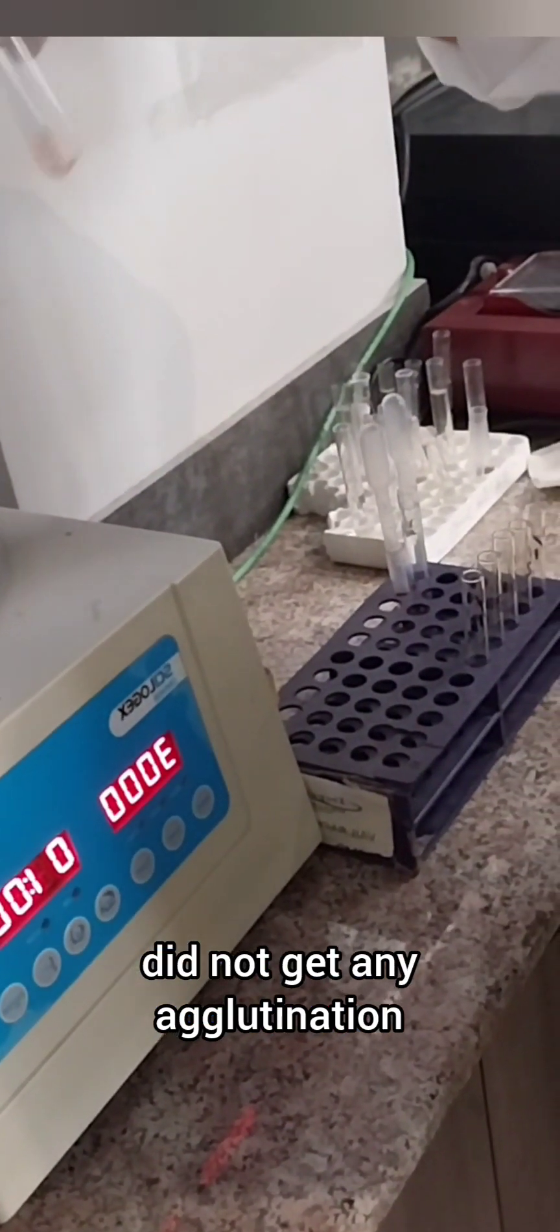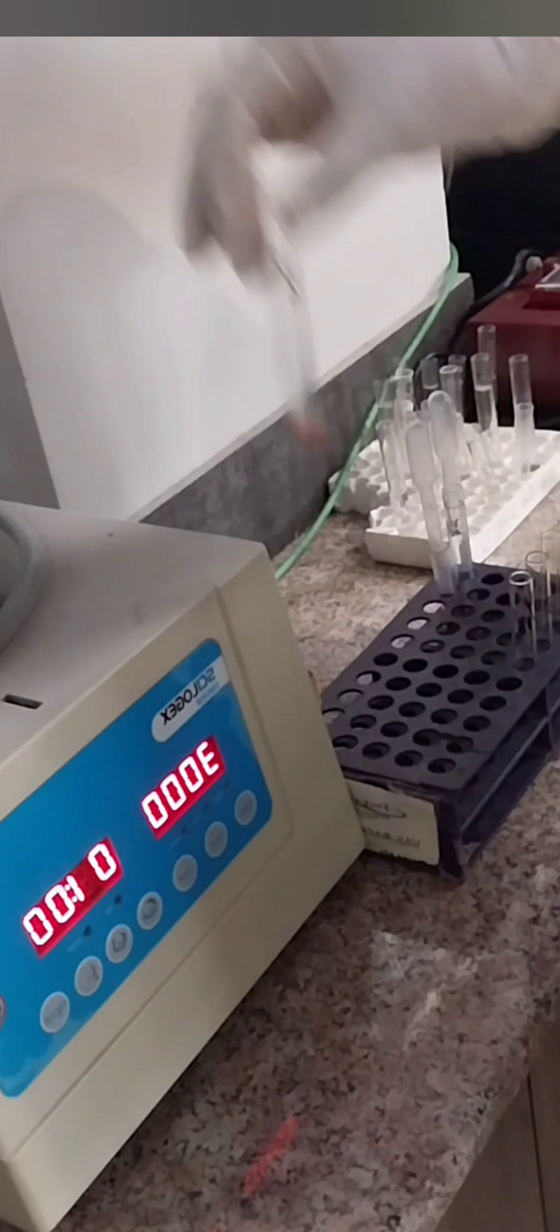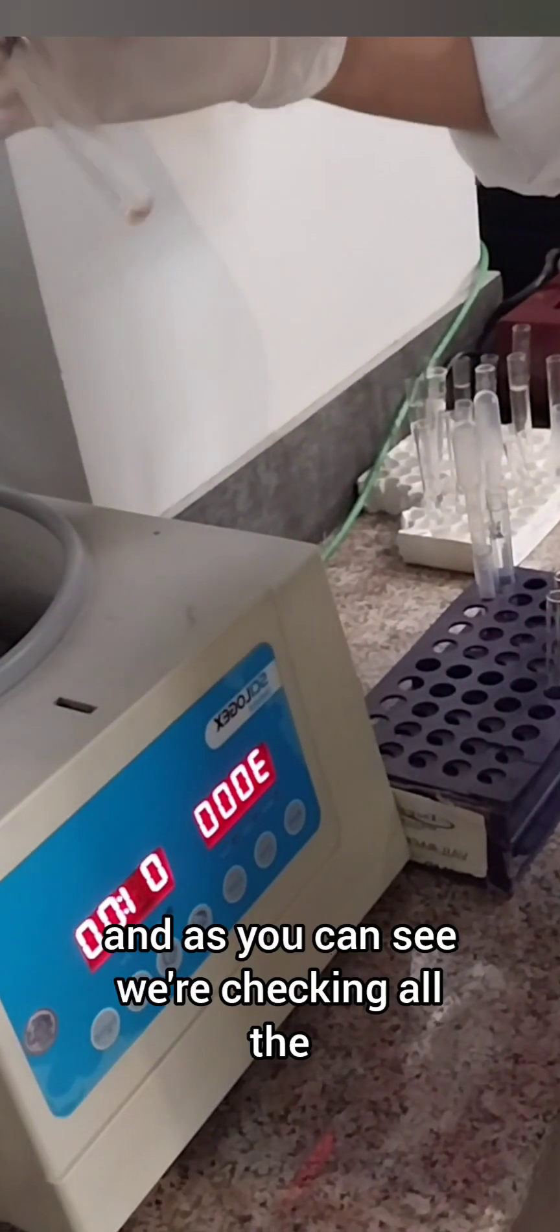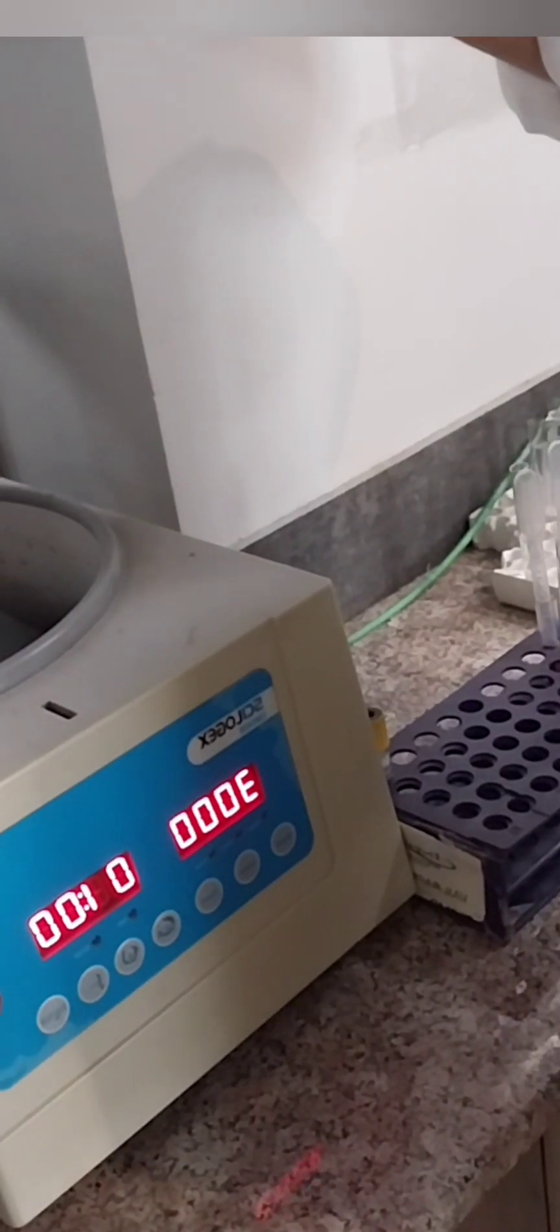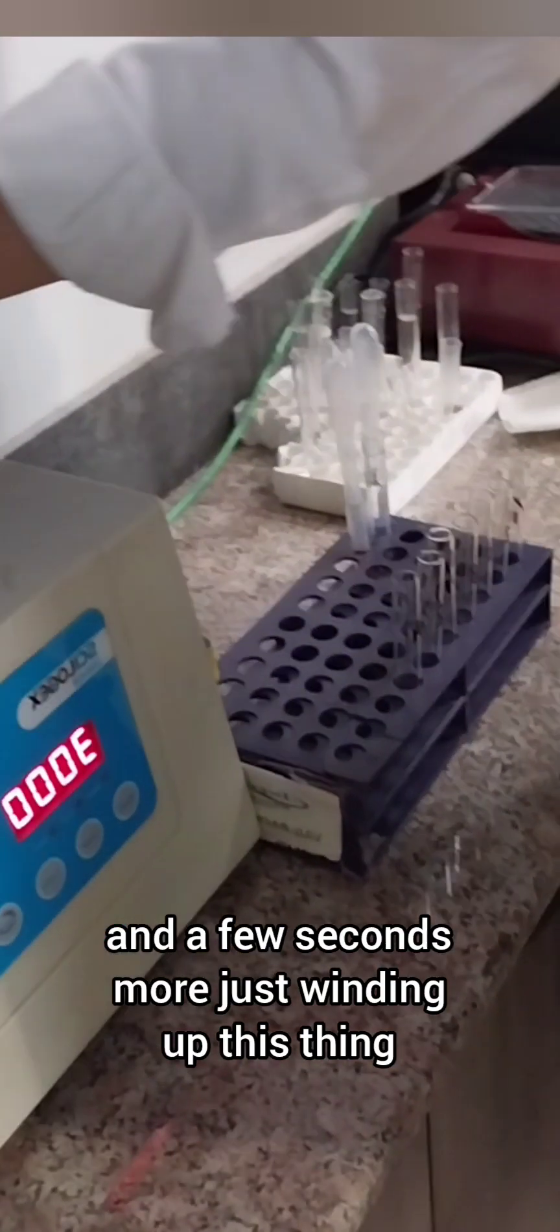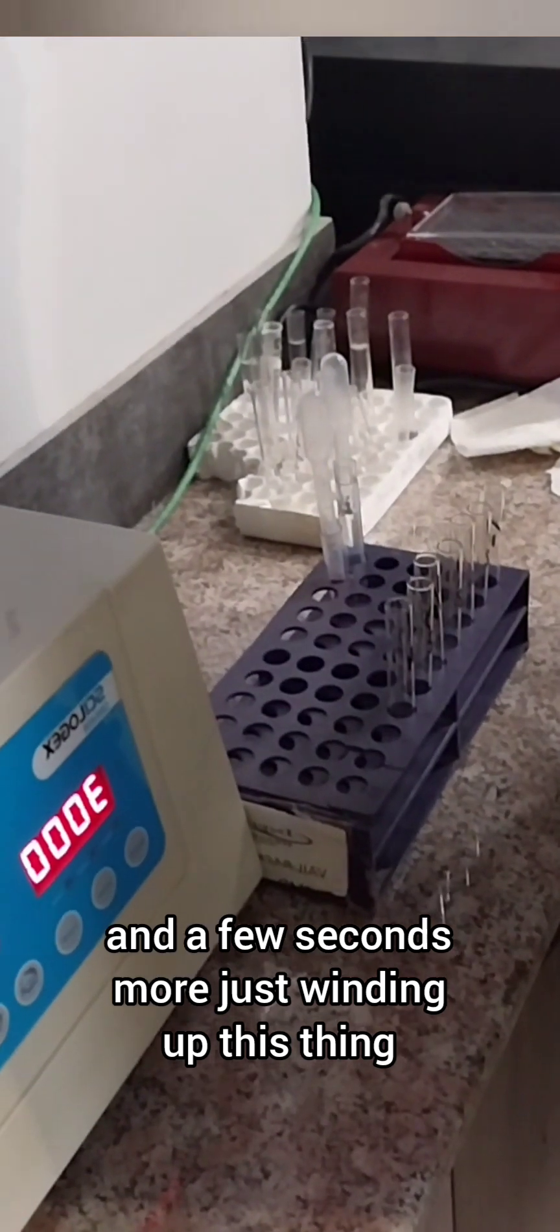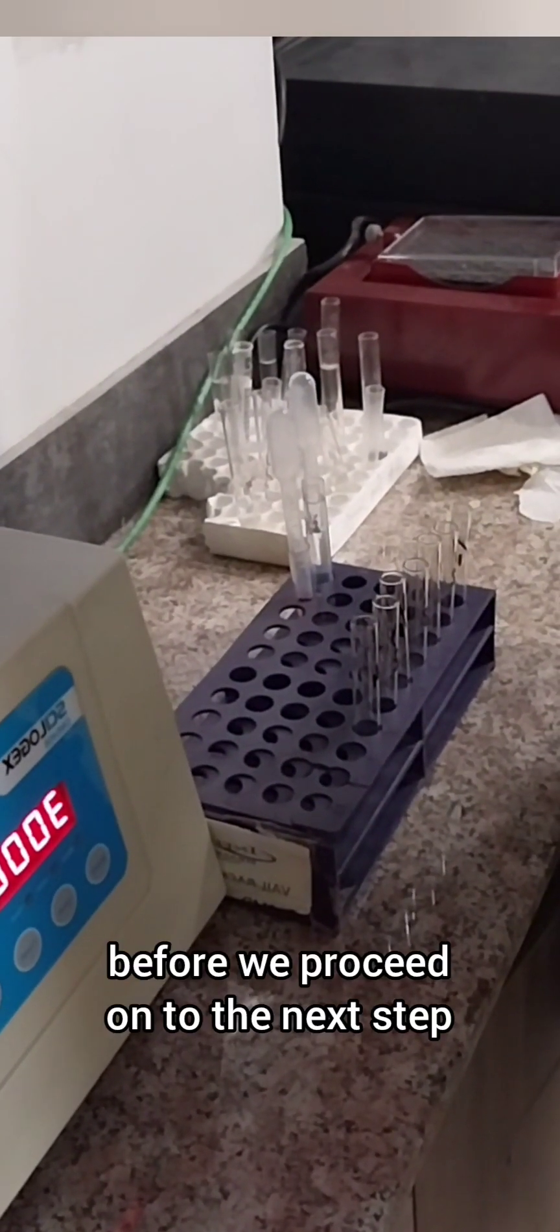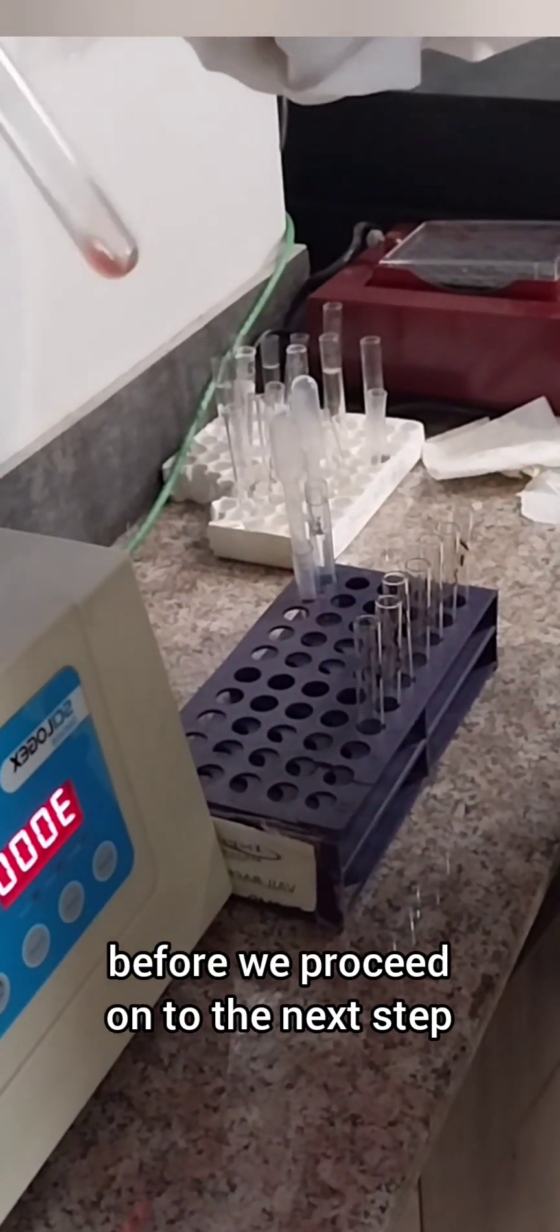But at this level, in this case at least, I did not get any agglutination. So gradually we're taking out all the tubes and we're checking all the tubes for agglutinates.